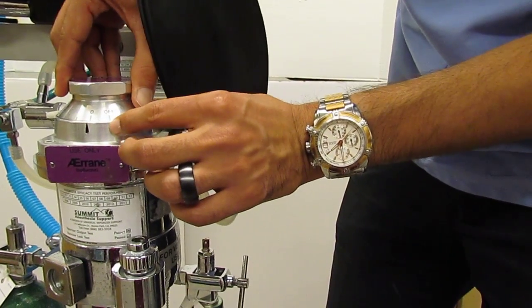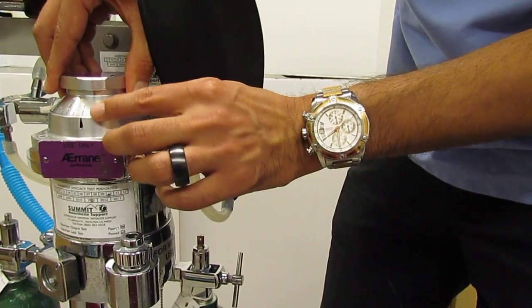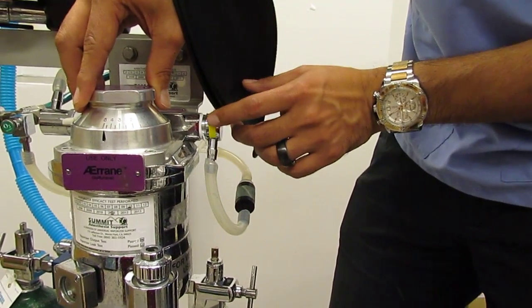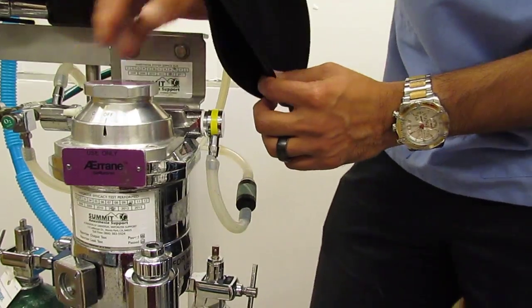for isoflurane, which is what this vaporizer is for, it has 1, 2, 3, up to 5% of what leaves the vaporizer can be anesthetic gas.